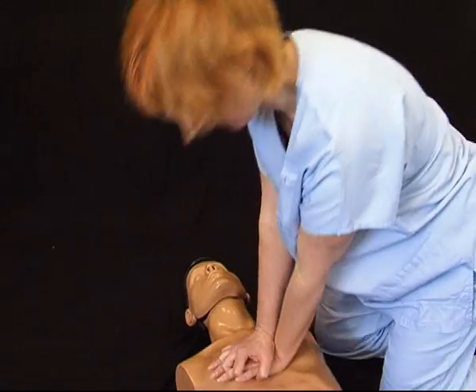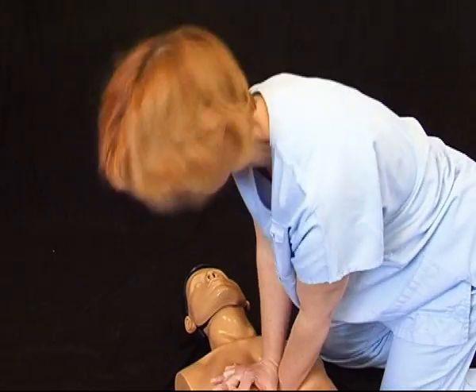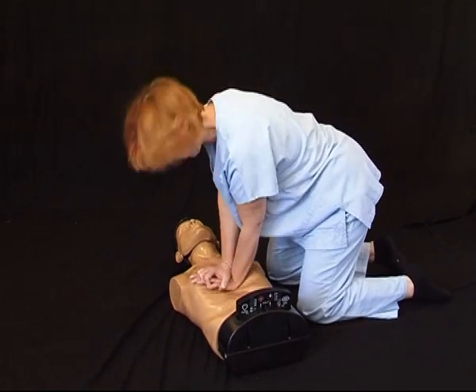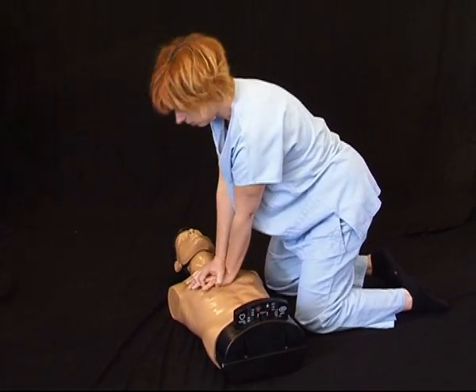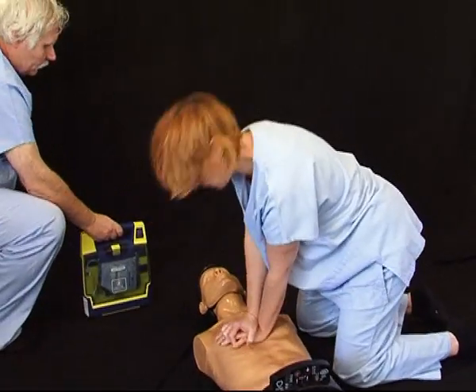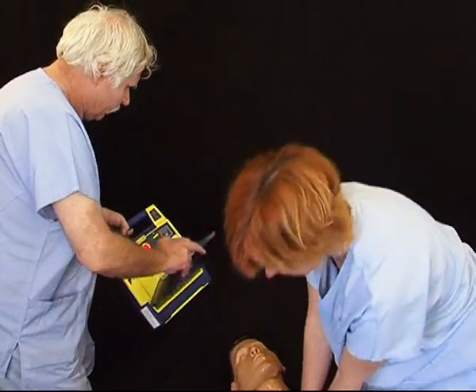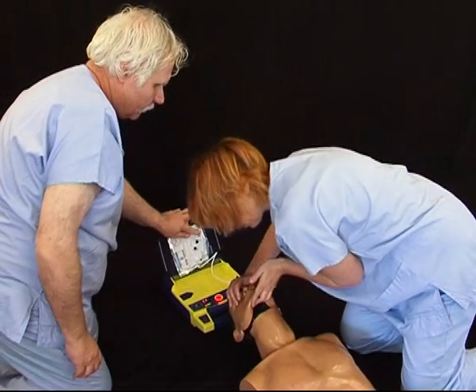Start chest compressions according to the guidelines for basic life support, followed by rescue breathing 30 to 2 until the AED is brought. When the AED is made available, the rescuer must follow the instructions given by the machine.